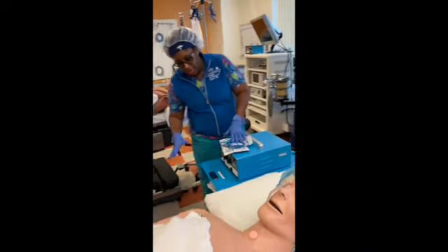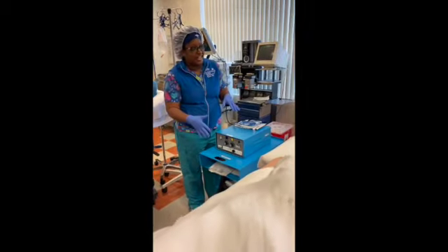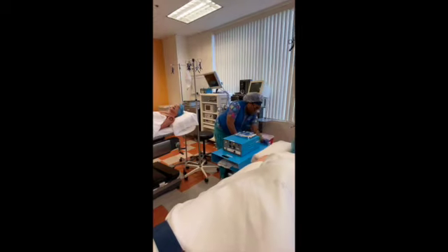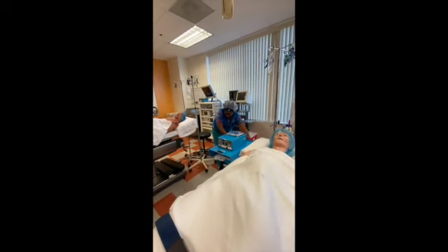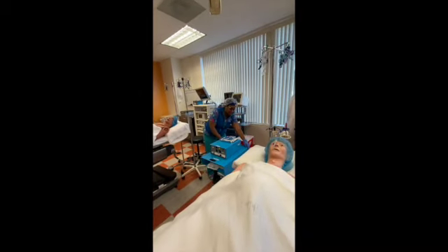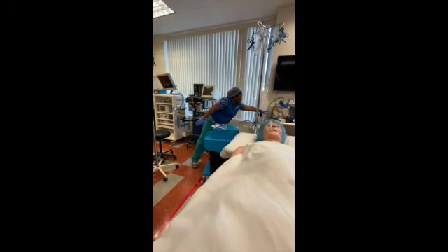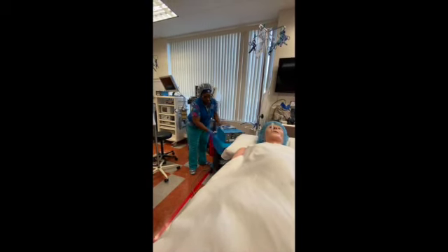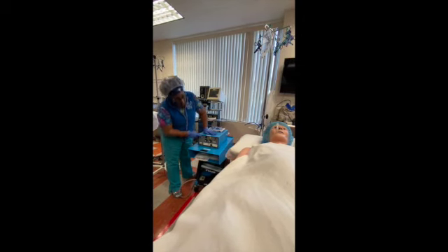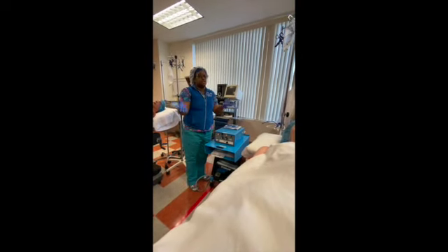This bovie machine is different from a lot of the ones you'll see because of the knobs. When you get to the operating room we're all digital. We make sure that it's plugged in right — the plug would be here, you'd plug it into your outlet. Turn it on and you will hear that noise. Then you're checking the surgeon's preference cards.